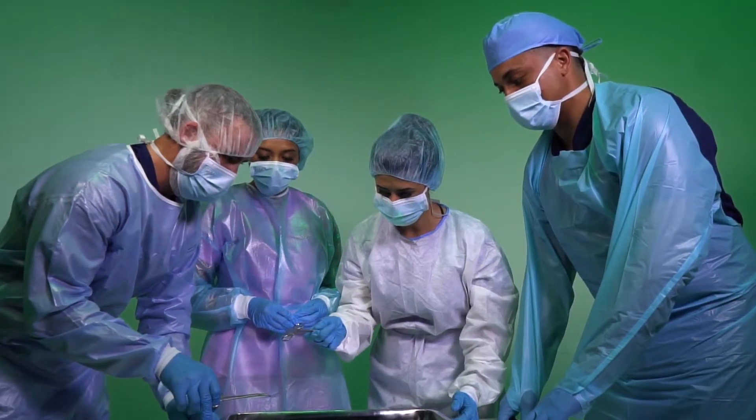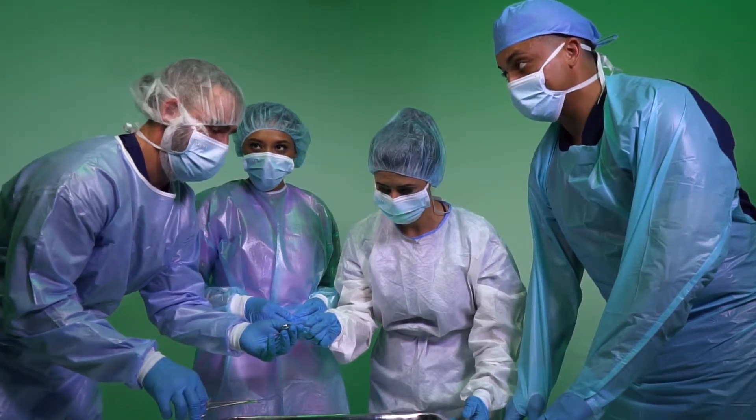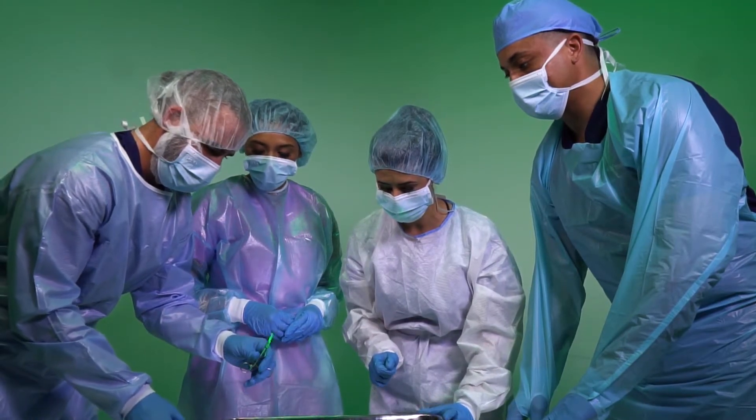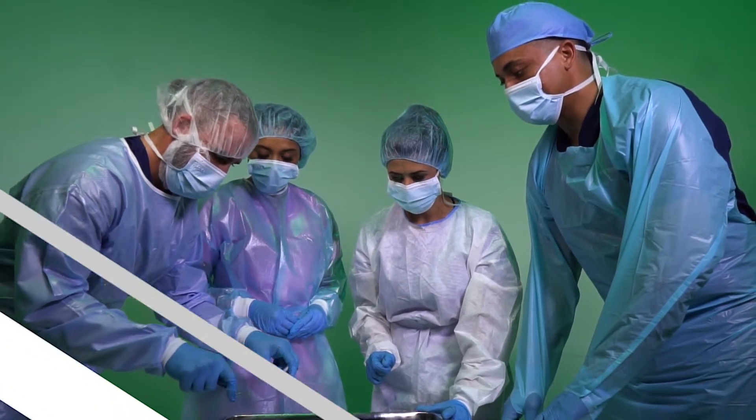Alpha ProMed knows and understands the obstacles cross-contamination poses on a proper infection control strategy. So we designed a beard cover specifically focused on reducing cross-contamination and protecting any procedures from facial hair debris, while also protecting the face, chin, and mouth from any hazards in the environment.